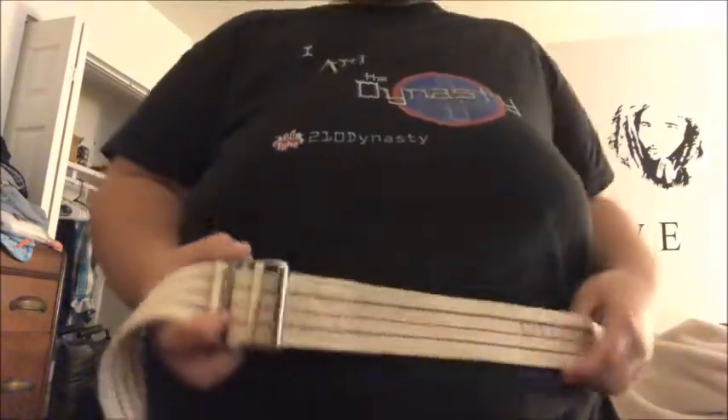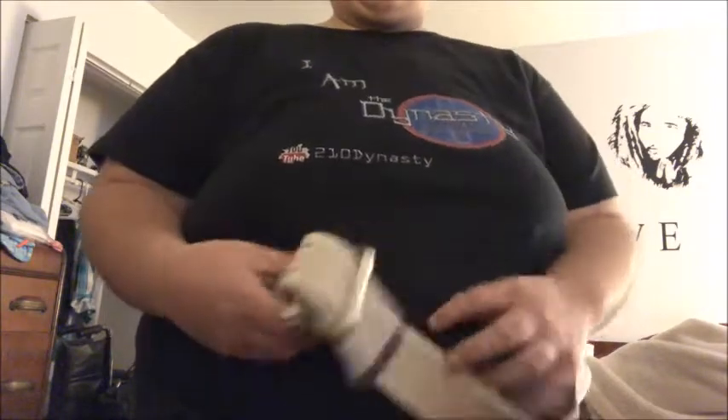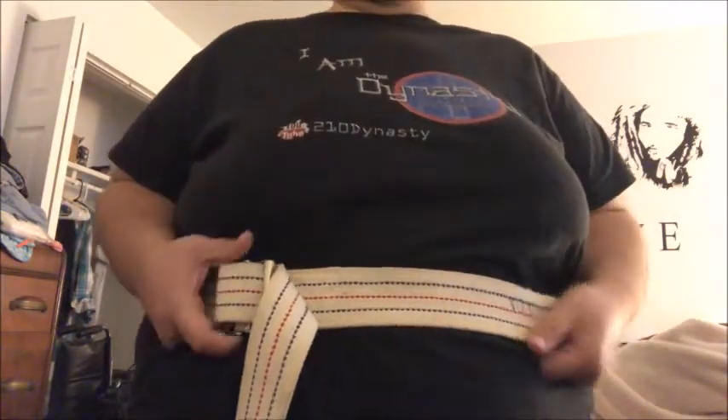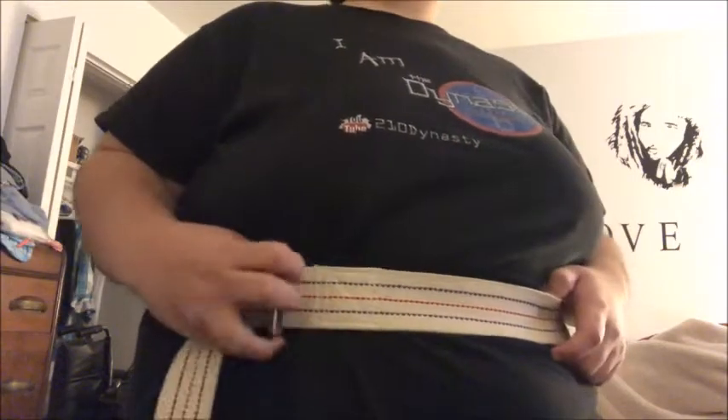Let's say it's loose — I'll loosen it up again just to show you guys. Obviously nobody can transfer me when it's this loose. You have this little loop, pull it — you get the gist of it. As long as you have that loop, it's going to make things a lot easier. Even if it's looser, you still have the loop, pull it, and now it's a lot better as far as trying to transfer or move somebody around.